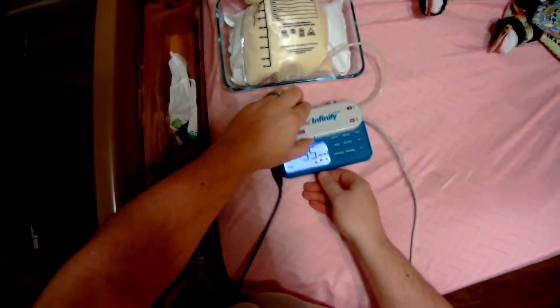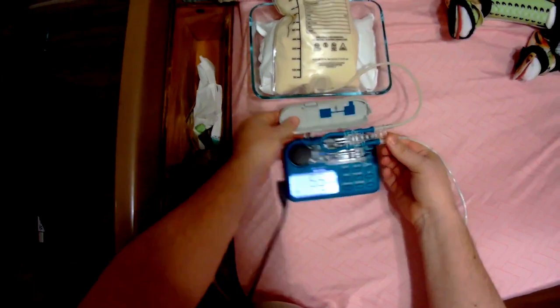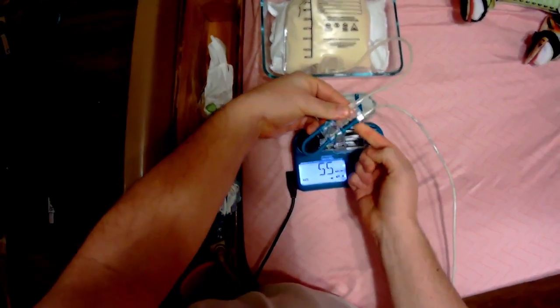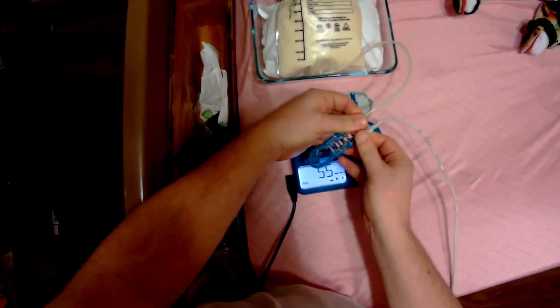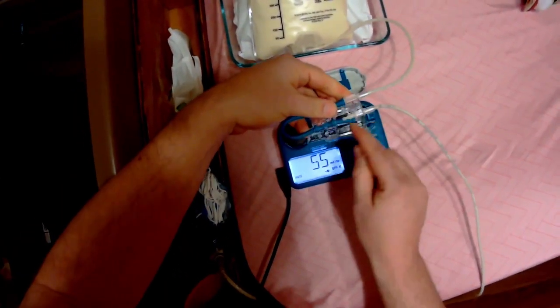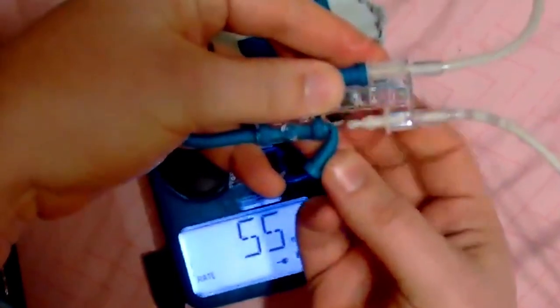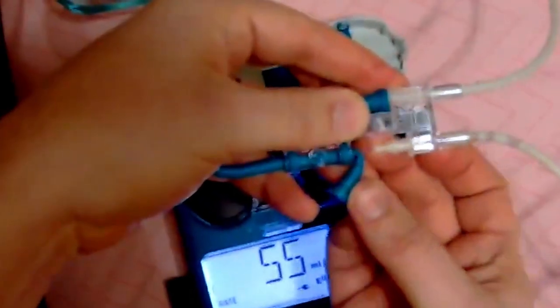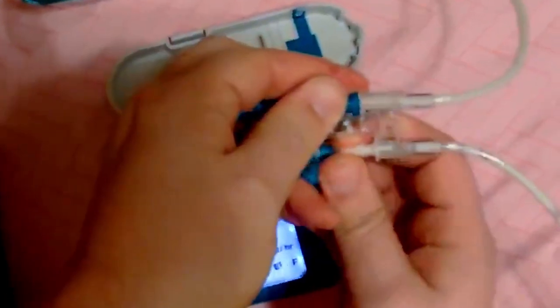The way you fix it is you actually break a little piece of this off. If you open up your pump you can see this piece here, and you pull this off right here — the bottom one, the one further away from the bag. You pull off this bottom one; it's just kind of sealed on there real tight. Then all you need to do is break this little piece off right here on the end of this plastic tube. You could use pliers to break it off, but for me the easiest thing is just to break it off with my fingers. You're going to twist it just a little bit.